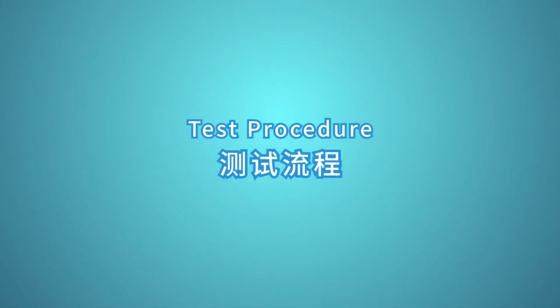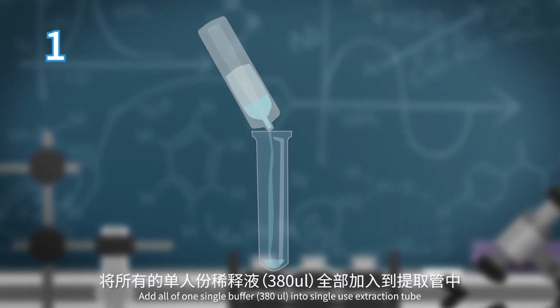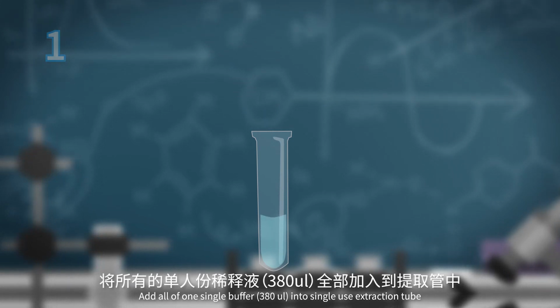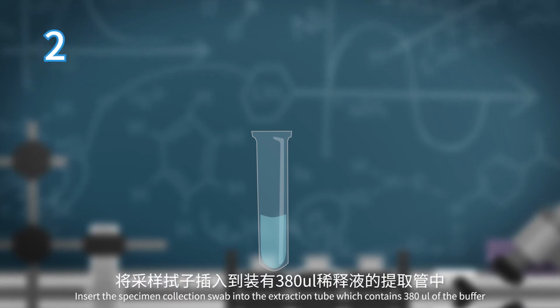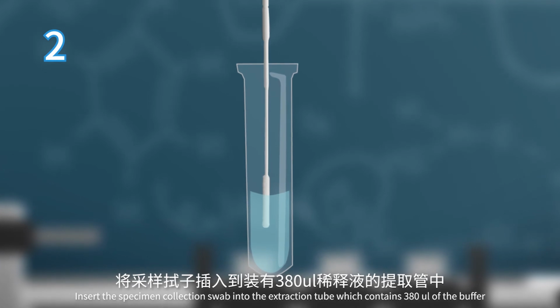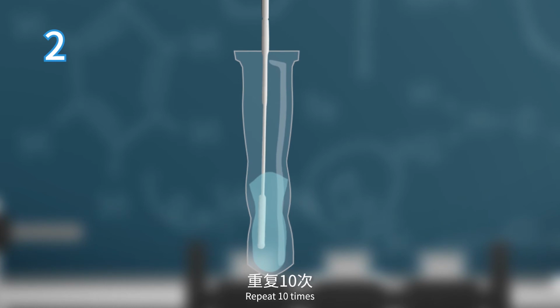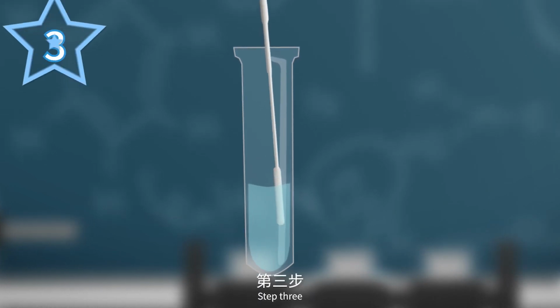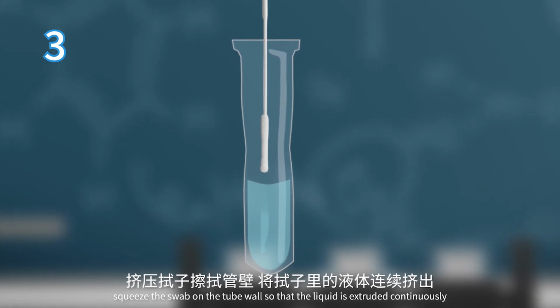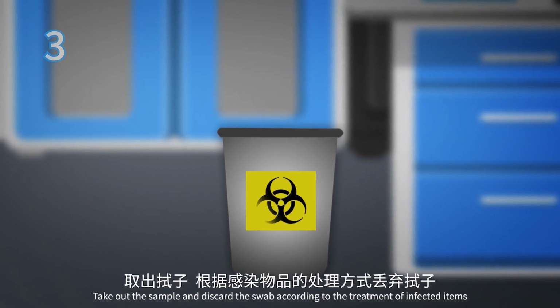Test procedure. Step 1. Add all of one single buffer, 380 microliters, into a single-use extraction tube. Step 2. Insert the specimen collection swab into the extraction tube, which contains 380 microliters of the buffer, and rotate the swab constantly. Repeat 10 times. Step 3. Squeeze the swab on the tube wall so that the liquid is extruded continuously. Take out the sample and discard the swab according to the treatment of infected items.